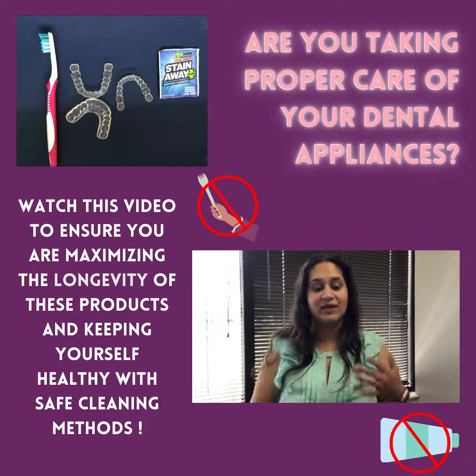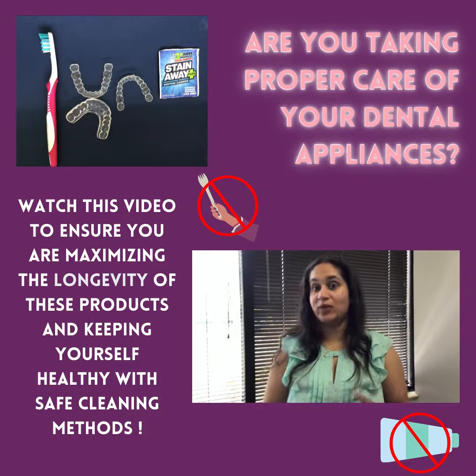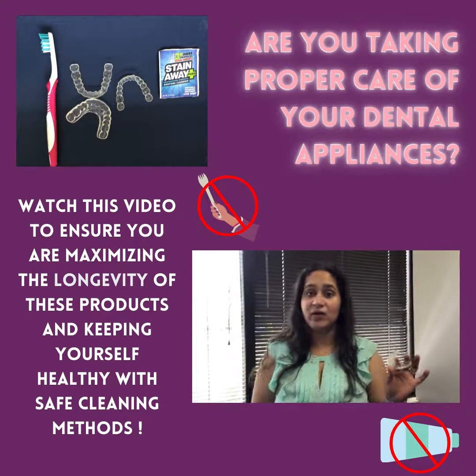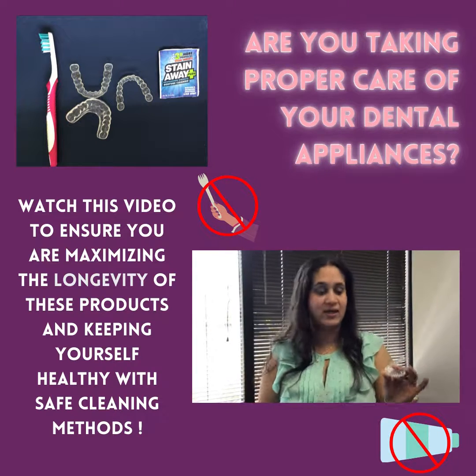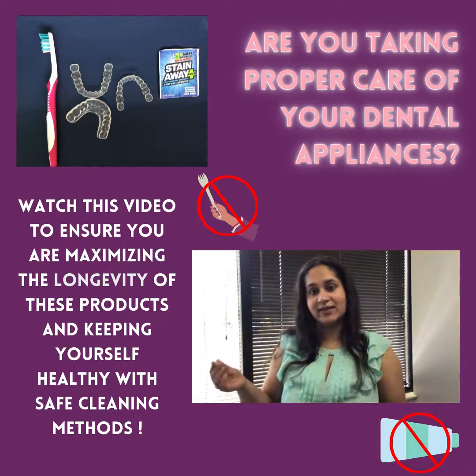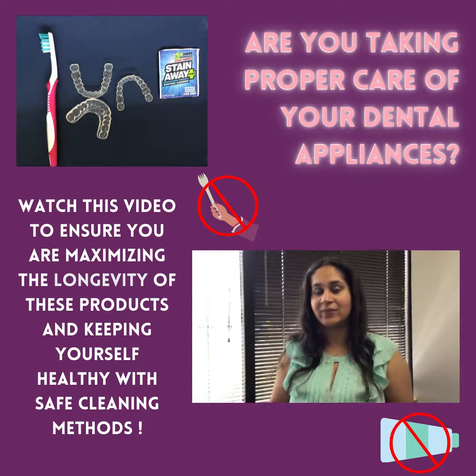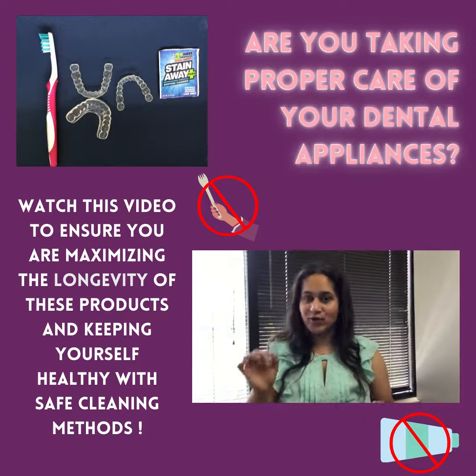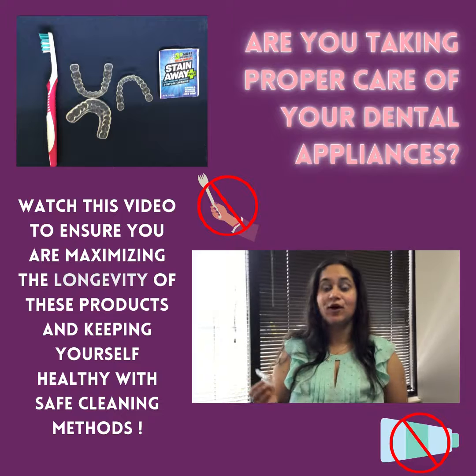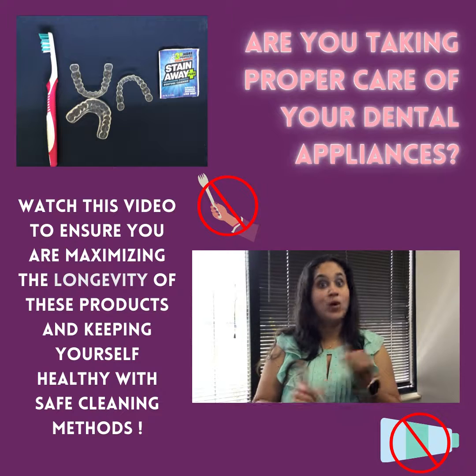One of the commonly asked questions is about how to take care of these appliances. Let me start with why it is important. Oral appliances are typically made of medical grade acrylic, also known as PMMA or polymethylmethacrylate. This material is an acrylic, so regardless of the medical grade strength, there are definitely minute pores. The care of these appliances can actually make or break it — both in terms of longevity and cleanliness.